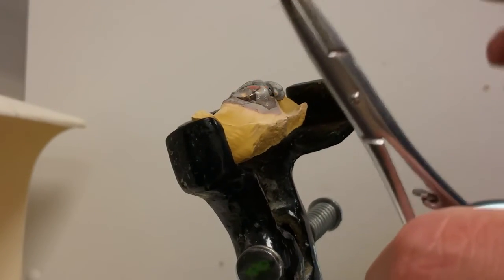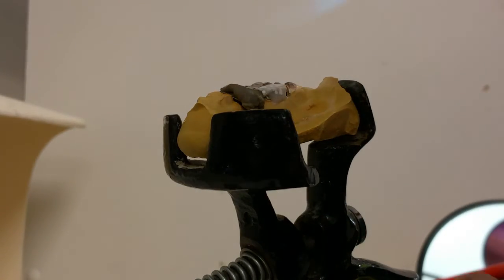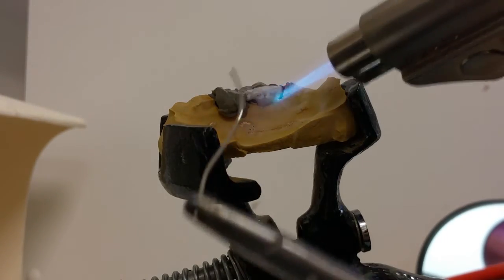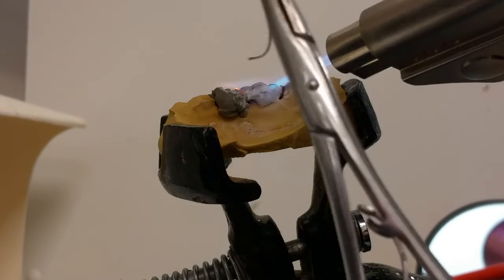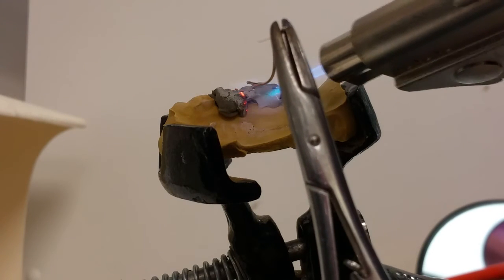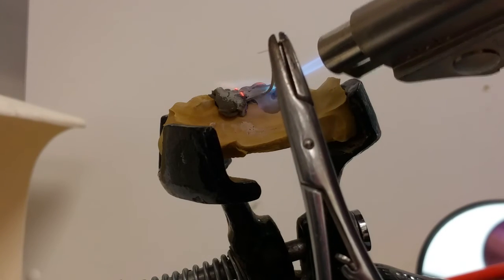Sometimes I can't get it. I call it the flux relaxing where I know it has flowed into all the corners and nooks and crannies that I want. If it just stays on top, it doesn't surround the wire. You want the wire completely surrounded by the flux. I'm kind of tapping the solder, putting it where I want it.